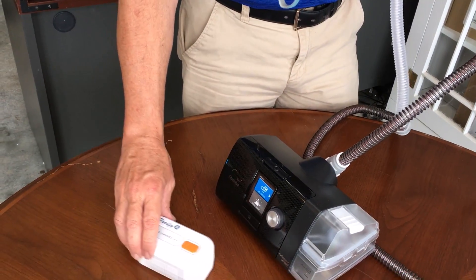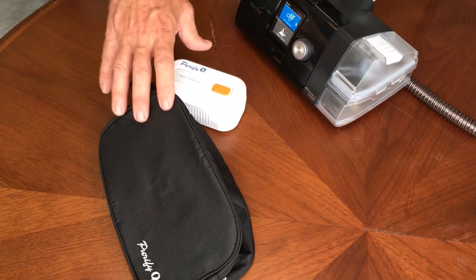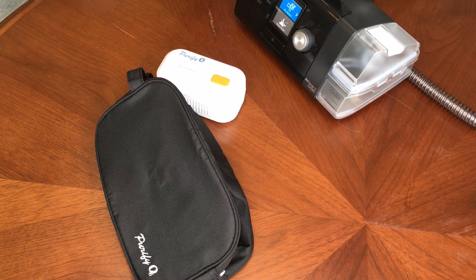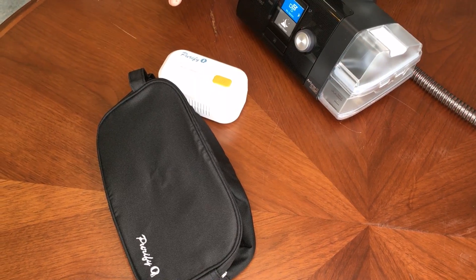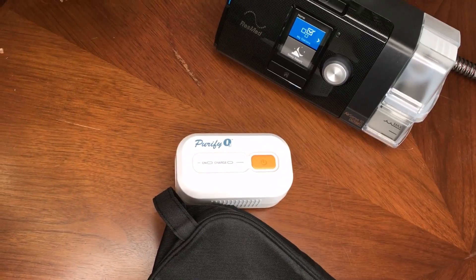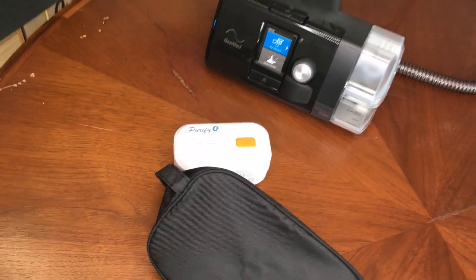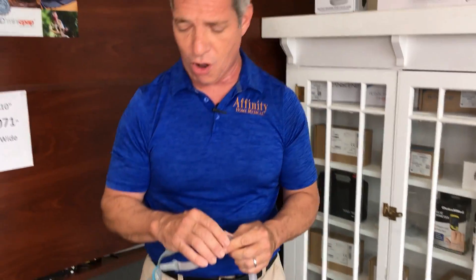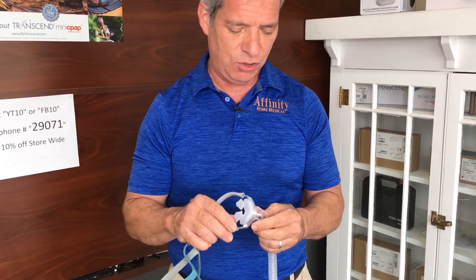Let's say you've got the Purify O3 already charged up. When you buy the Purify O3, you get the little case, the Purify O3, and also some charging cables. You want to make sure it's fully charged before you try to use it. Most people just leave it plugged in all of the time so that when it's time to use it, it will already be fully charged. It will not work whenever it's plugged into the wall, so it has to be charged in order to use it.